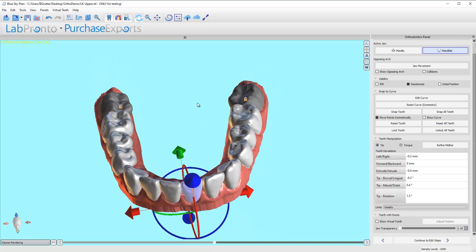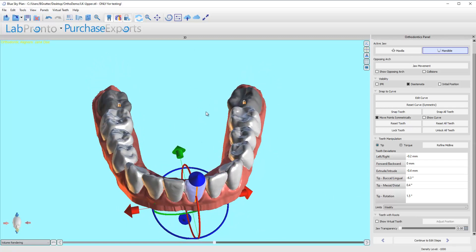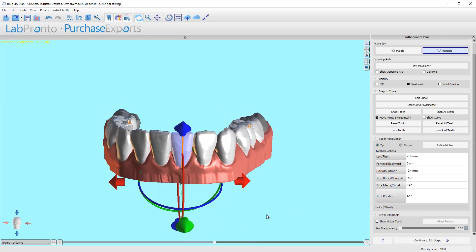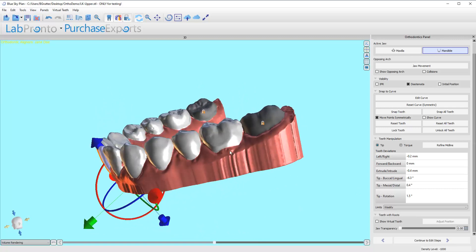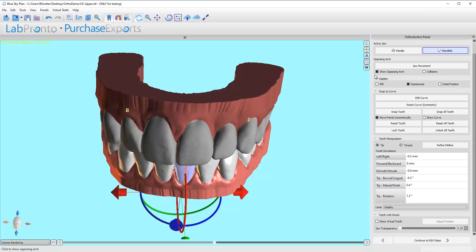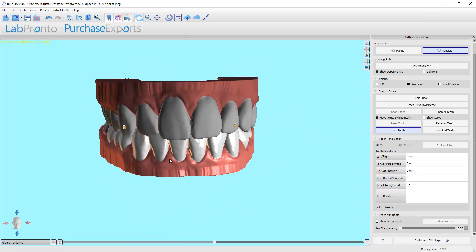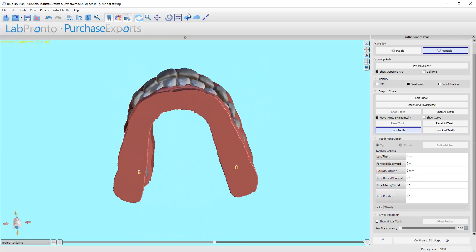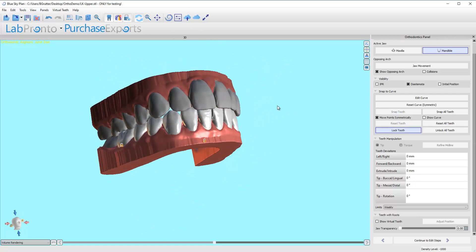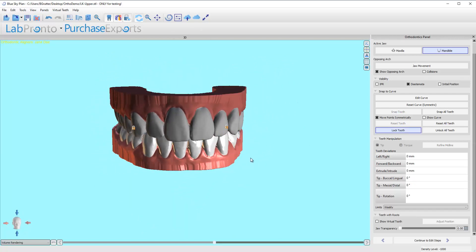I'm actually glad that I've intruded some teeth because the next phase—well, two phases from now—you're going to see the other really cool update to the software. Now what we have to do: the last thing, we've got everything lined up, we see okay, this is what I want my teeth to look like. I like this smile, I like the occlusion, everything's sort of fine-tuned. I'm ready to go.